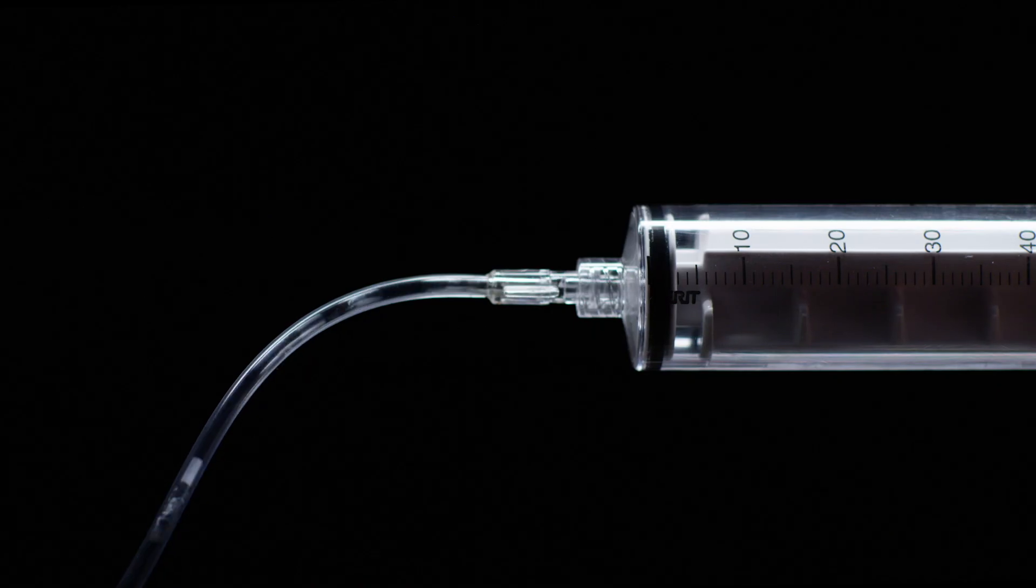What happens when a healthcare company that understands, innovates and delivers acquires the rights to distribute a proven, trusted medical device? A product is reborn and excellence is continued.